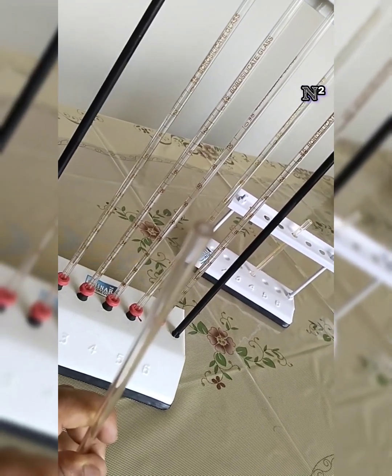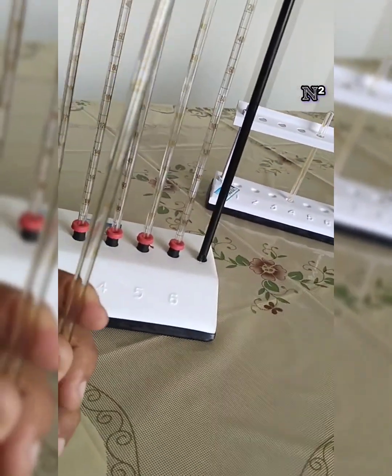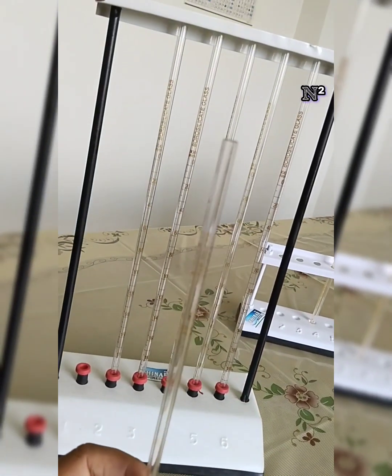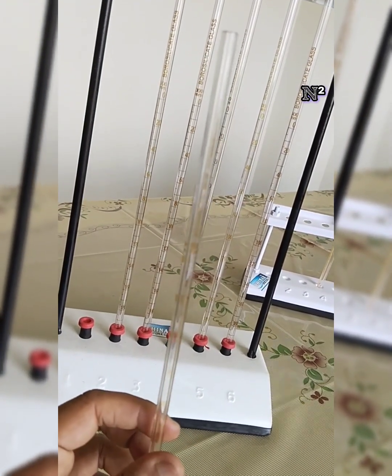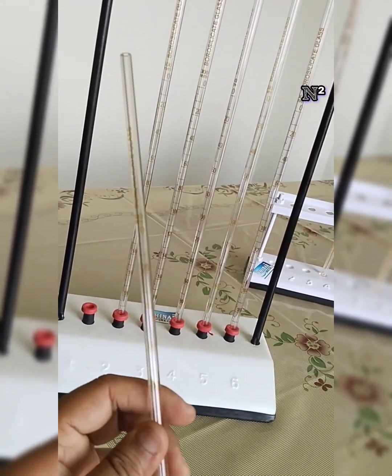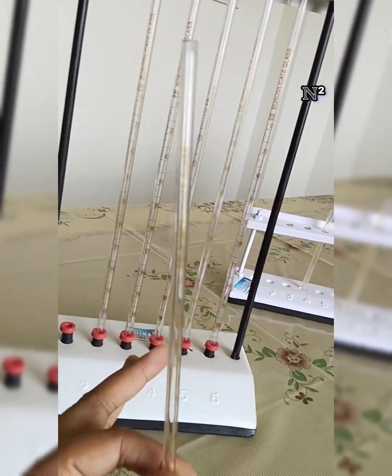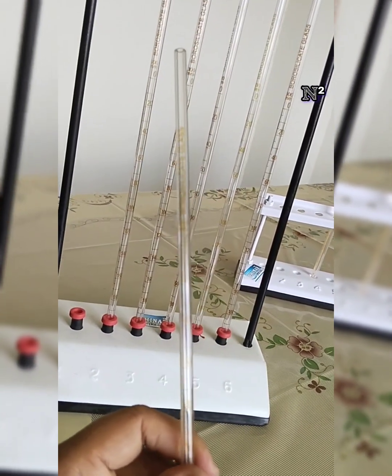So in school level you might have done titration. Titrating pipette, you must have heard the word. This is the same thing only. So whenever a pipette is mentioned, that means the instrument has both ends open. And if somebody is speaking about a test tube, it's a tube with one end, so it's a blind-end instrument. This is an open-ended instrument.